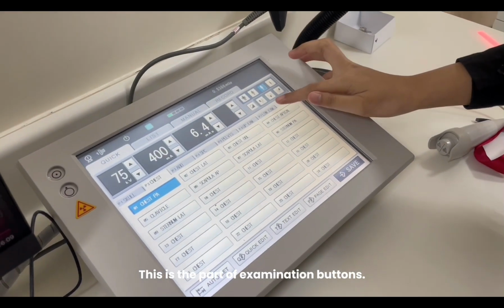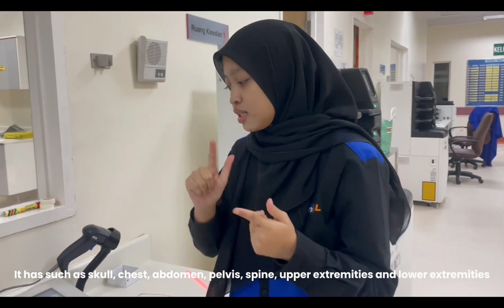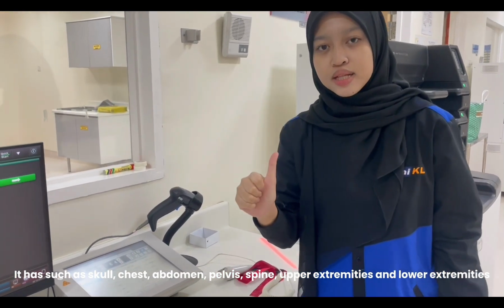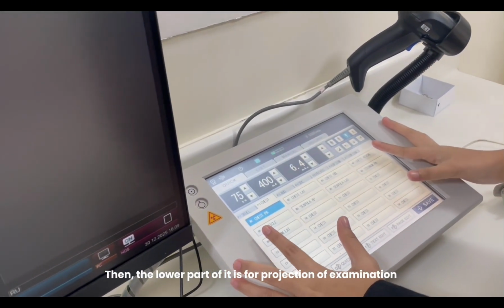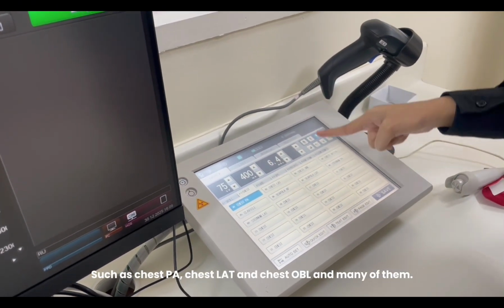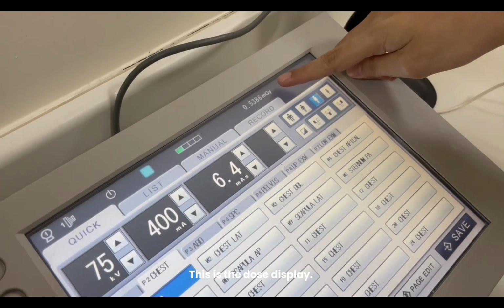This is the part of examination. It has such as skull, chest, abdomen, spine, pelvis, upper extremities, and also lower extremities. Then, under the lower part of examination, we have chest projections. There is chest PA, chest lateral, chest oblique, and many of them. This is the dose display.